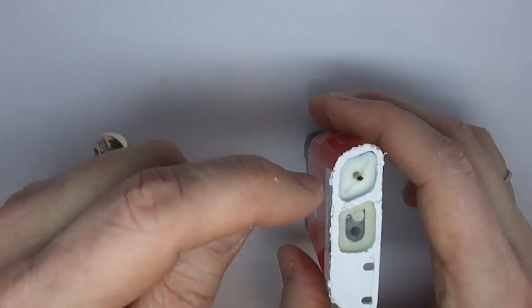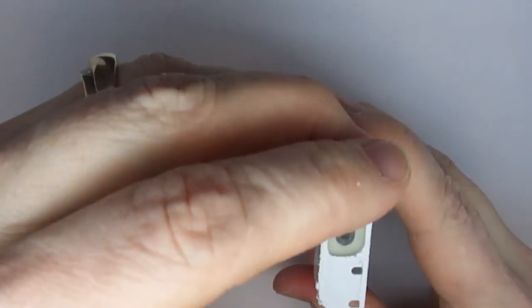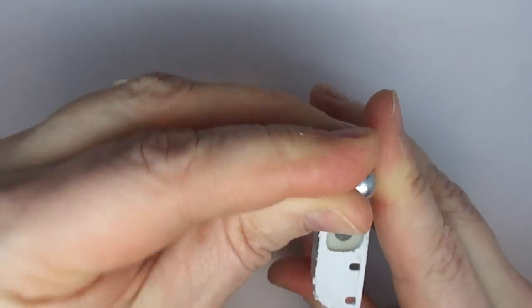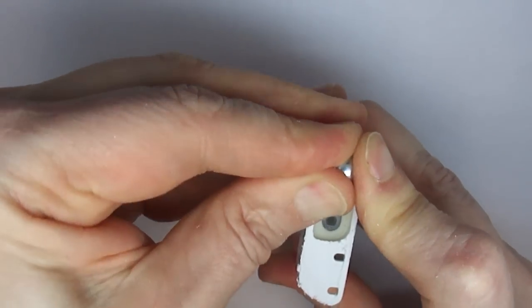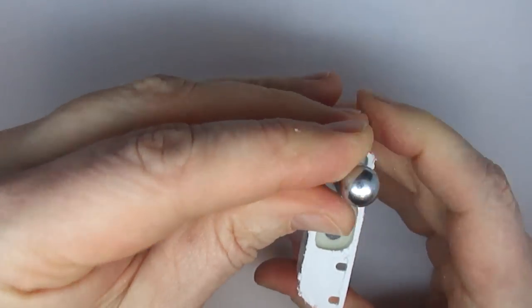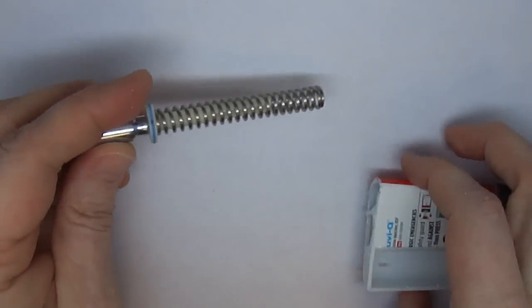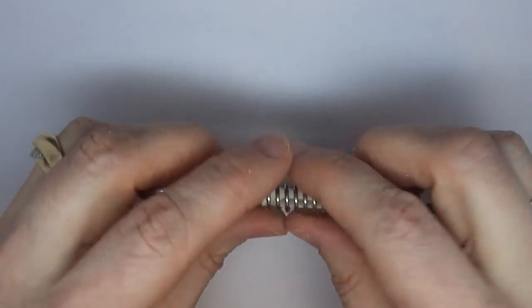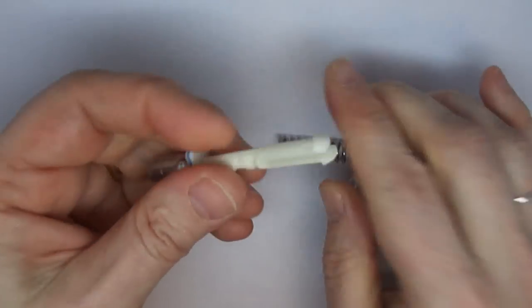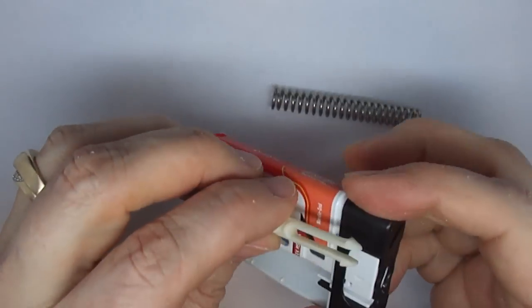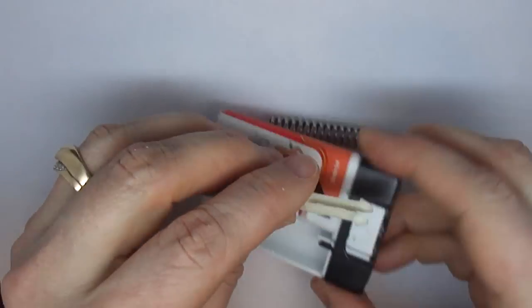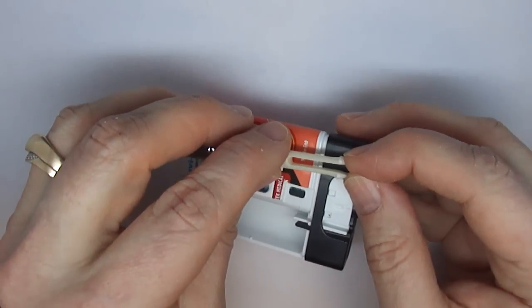This far section is what contains the spring. On the top of this section is this little canister, and when it's new, this would be down contained within the device. When you pull it out, you can see there's the spring. These were the two little prongs that were holding the spring inactivated that, when pushed up, activated the spring.